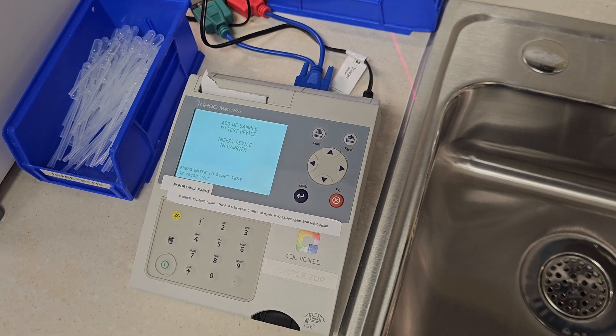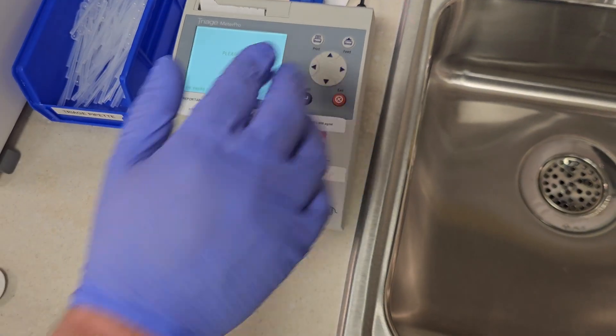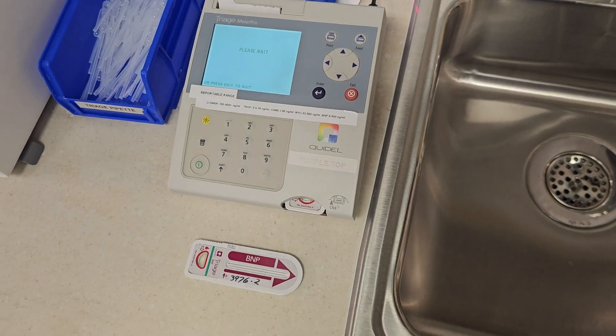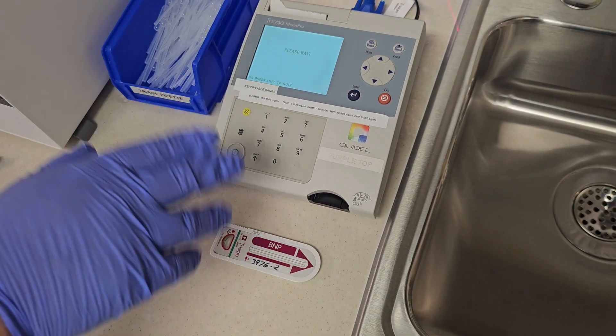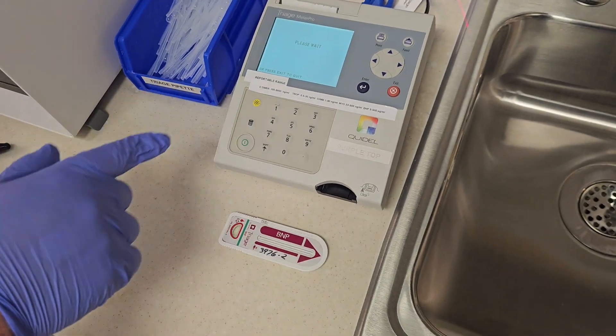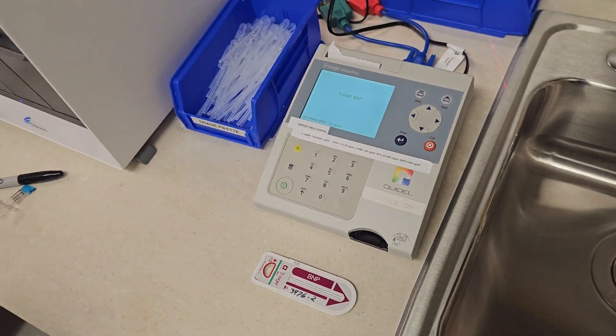The beauty of this is while that one's running, this one is running at the same time. The machine is just a reader. Occasionally the machine is going to ask you to install a code chip.